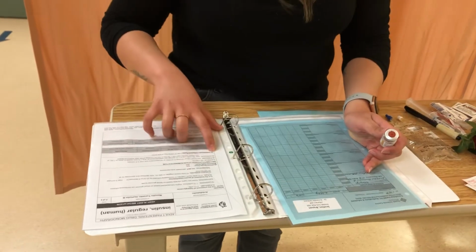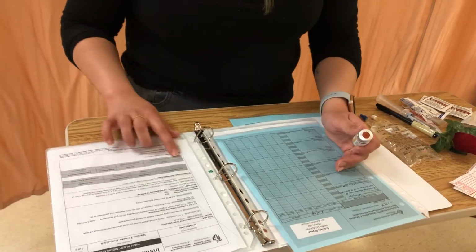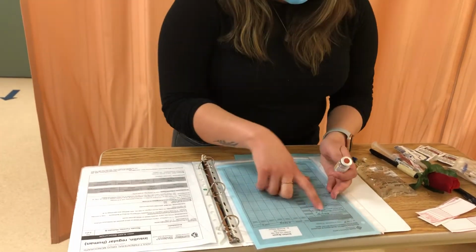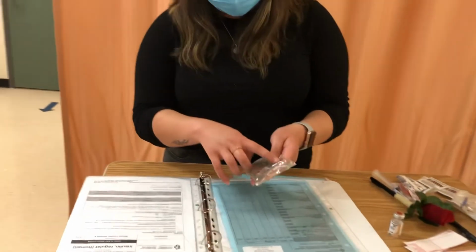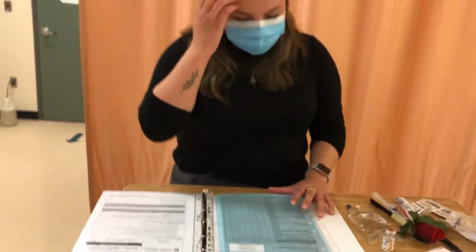I'm using the PDM through the IV continuous recipe to prepare this correctly for a continuous infusion, and it will be reconstituted to be able to deliver it in that manner. This is ordered at 2 units an hour, so that's the correct dose. Through the PDM, I will be reconstituting 100 units of insulin, and then we'll program the pump to deliver 2 units an hour. And then it is due today and now. And then I'm just going to double check here that I have the correct diluent. So I have 100 mLs of normal saline, and I have confirmed that. So I'm going to go ahead and start preparing my medication.